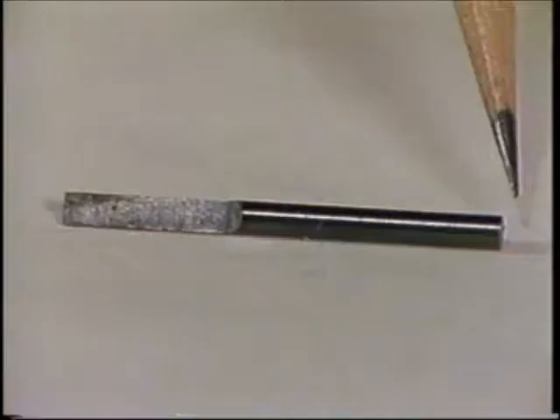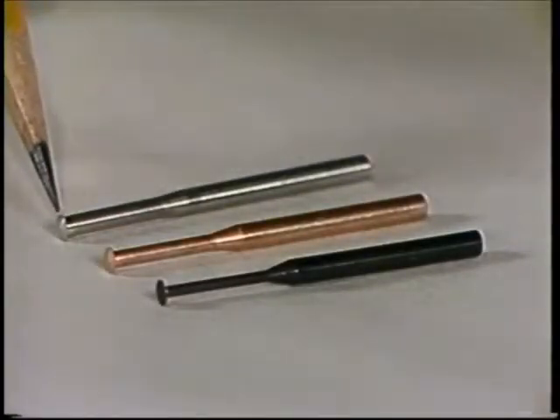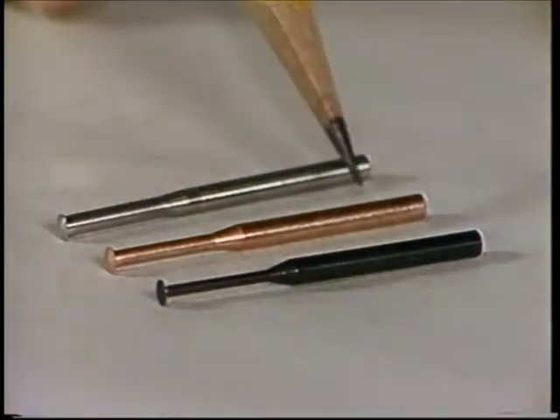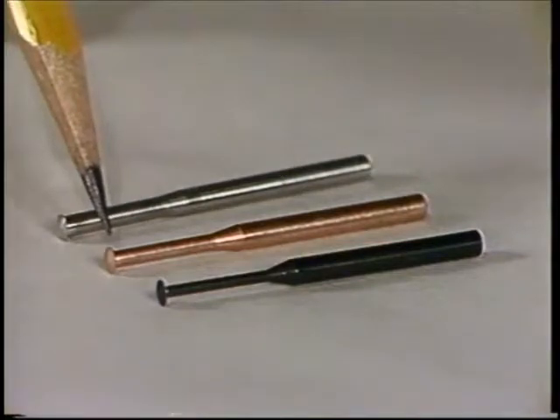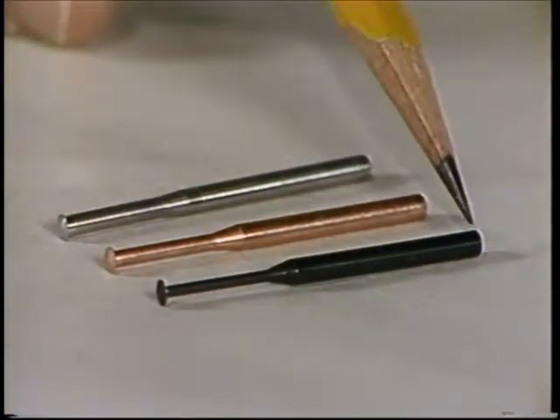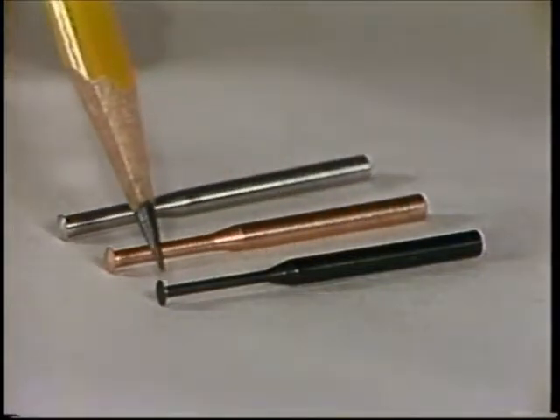A carving tool is useful to simulate tooth preparations on the cast. Normally, if the restorative procedure can be successfully simulated on the cast, it can be performed in the mouth. Undercut gauges allow one to measure the depth of undercut relative to the height of contour. They are usually scaled in inches and are designated as 0.01 inches, 0.02 inches, and 0.03 inches.